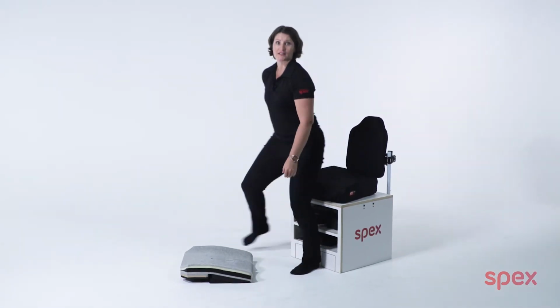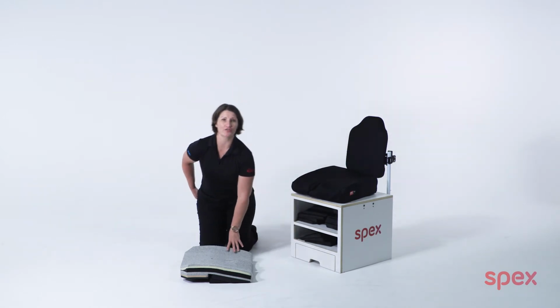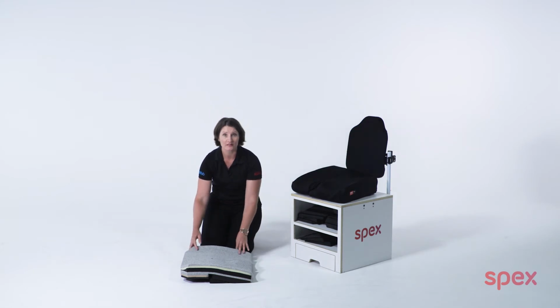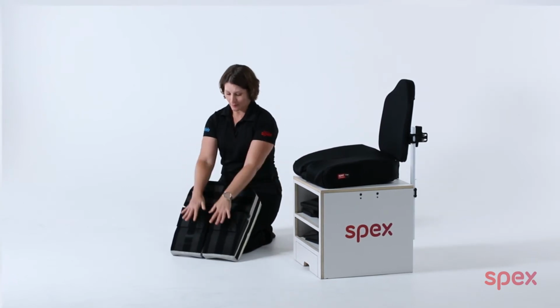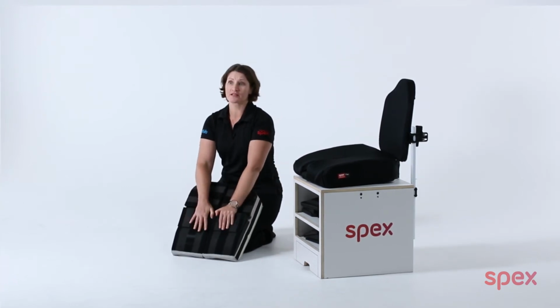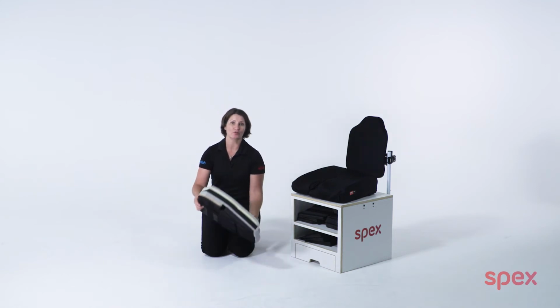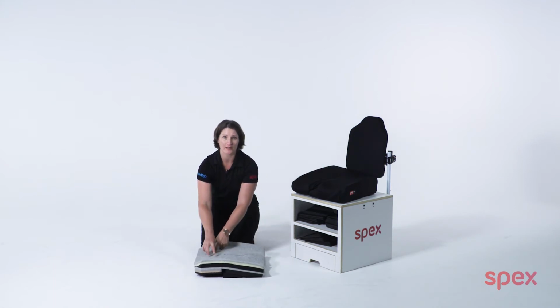The flex cushion is designed to create a stable and comfortable seat foundation for the wheelchair user, with hip flexion asymmetry and/or limitations. It allows for quick on-the-spot adjustment by adjusting the strategic positioning base. A key feature of our flex cushion is to promote improved contact and weight distribution through both ischial tuberosities of the pelvis to allow for greater acceptance of the base of support.